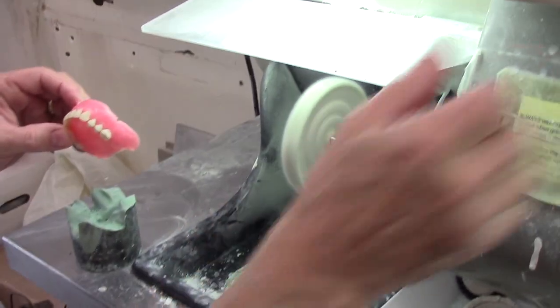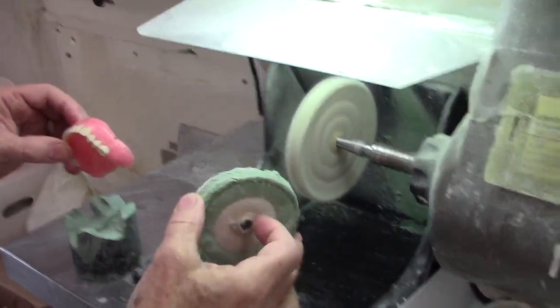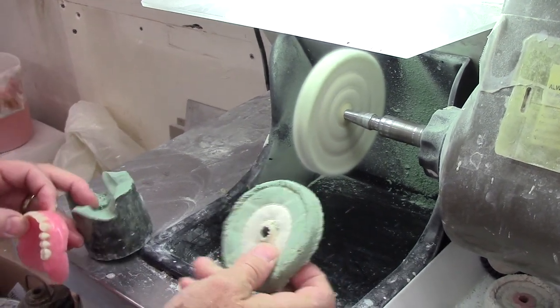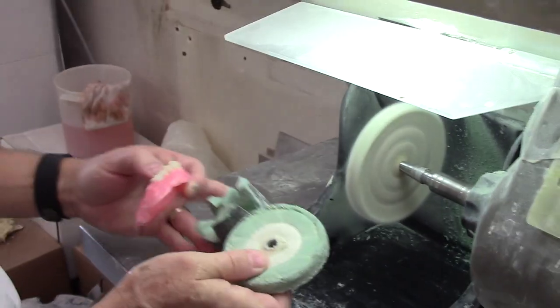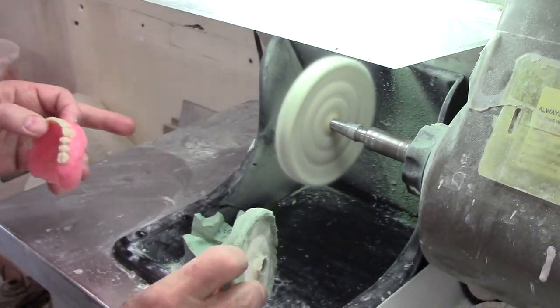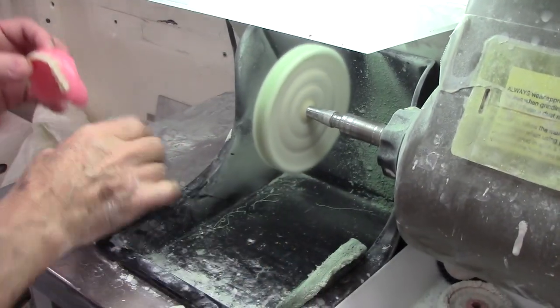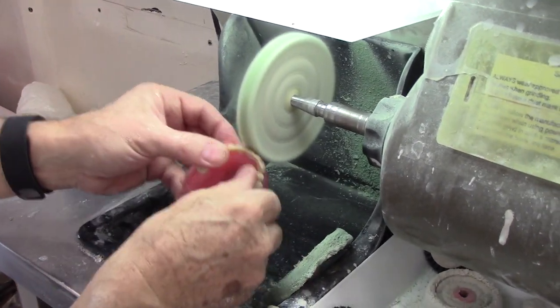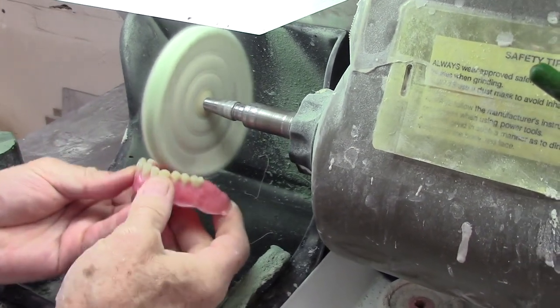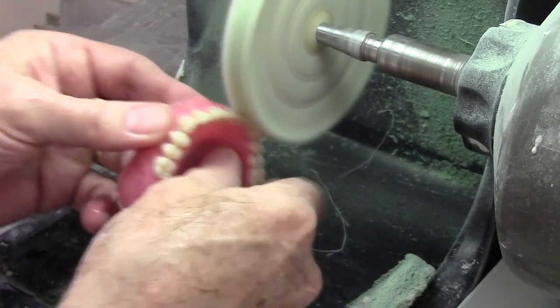The high shine is done with a soft wheel — this is soft. It should not be hard as a rock like this one is; it's way overfilled with polishing compound. That's got enough polishing compound on it to where it's totally ruined the wheel. It's got to be soft, kind of like shining your shoes. The scratches should all be gone and all it's going to do is give it a little bit of shine. So you go real soft, go over it, and it should take about that long.